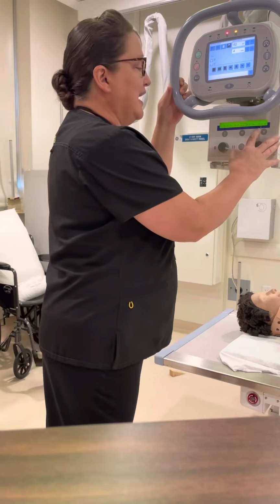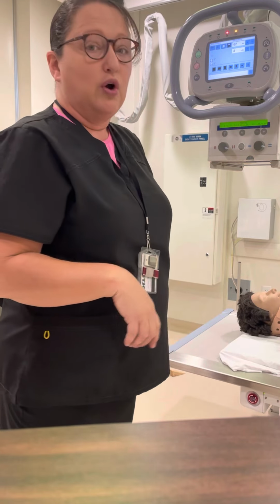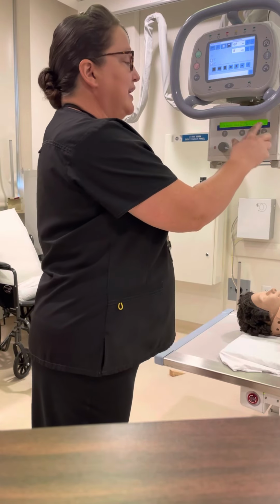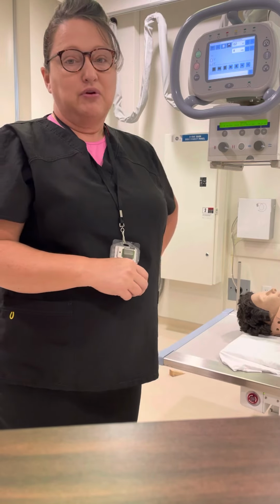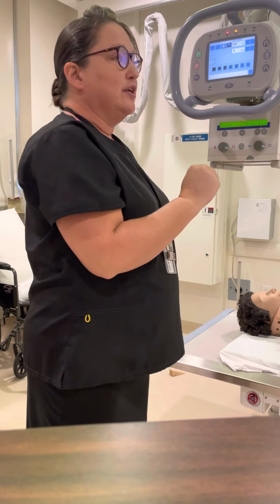And it's not exact. Right now, it's supposed to be for 40-inch SID, and it's set at 39.4. And that's just how our biomedical engineers set that. If I change it to 72, it actually goes to 70.9. I would like that to be a little more exact, but it's not. But for each projection, you need to set this SID indicator, always.